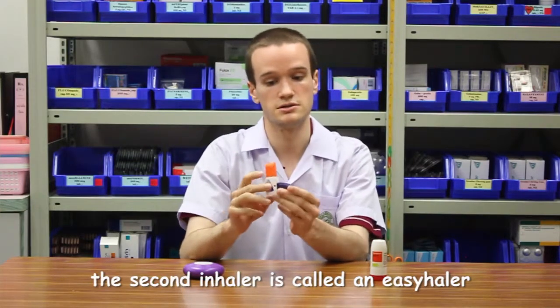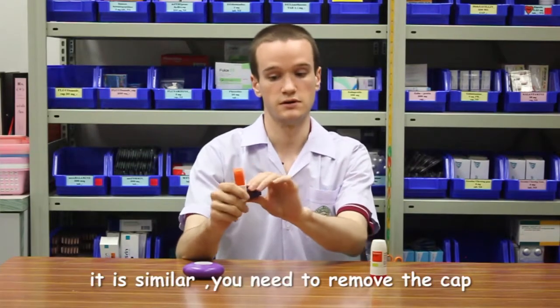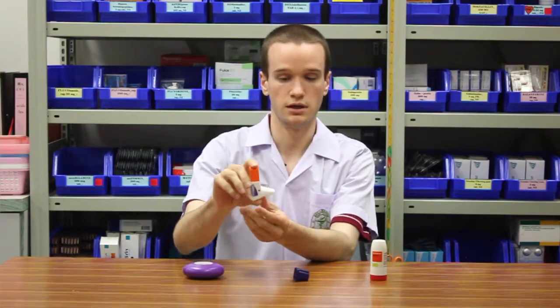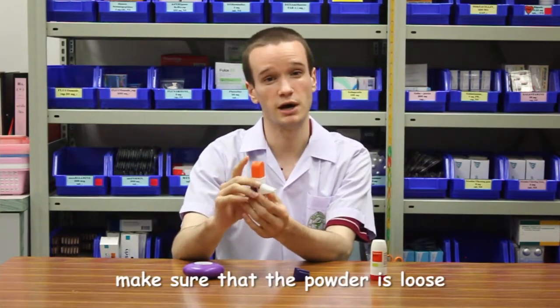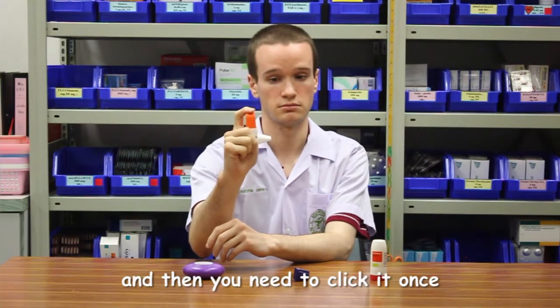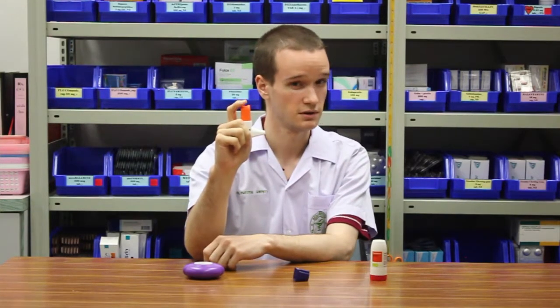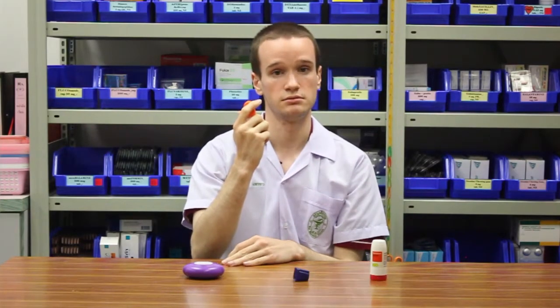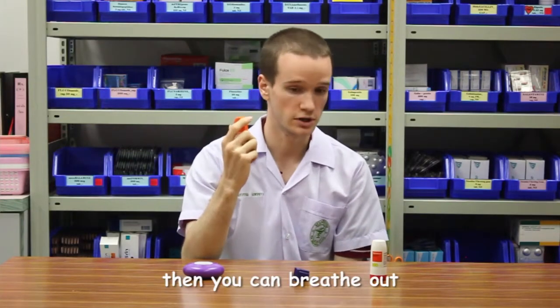The second inhaler is called an EasyHaler. So to use this medication, it's very similar. You need to remove the cap, and then first shake it to make sure that the powder is loose, and then you need to click it once, and then again breathe out to the side, and then put it up to your mouth and breathe in very quickly and very deeply. Hold your breath for about 10 seconds, and then you can breathe out.